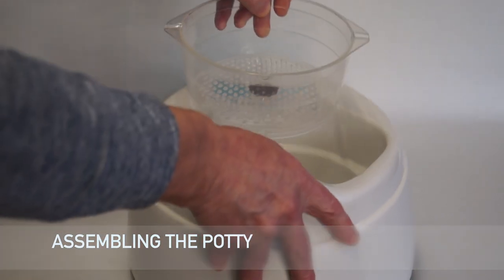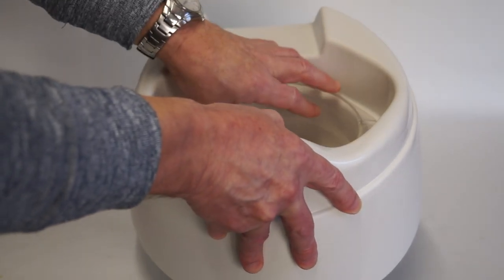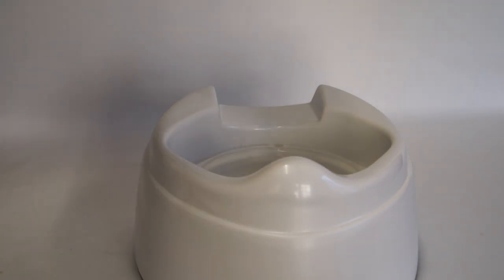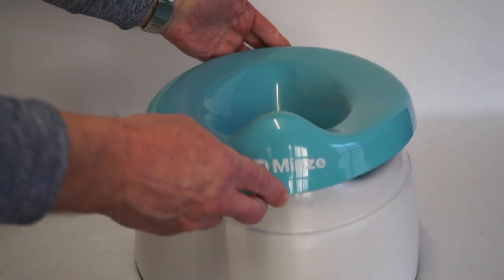All component parts of the system are made from high-quality, durable plastic. These parts are easily cleaned and disinfected, ready for use next time.